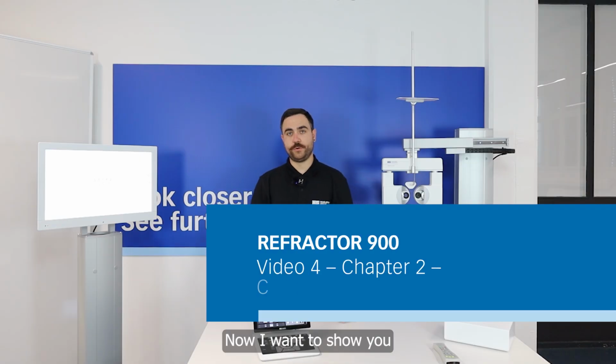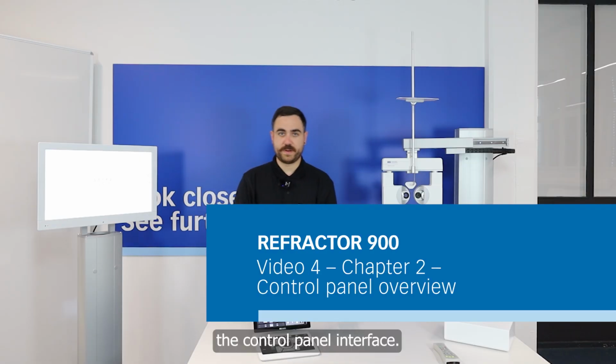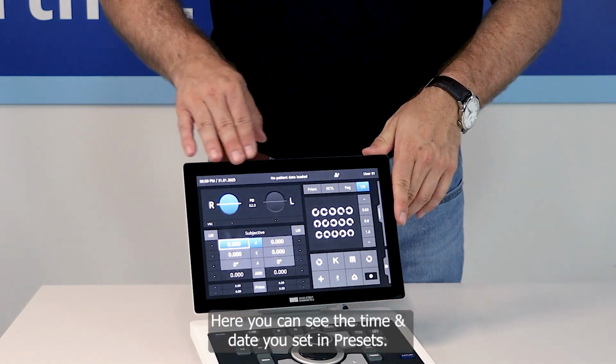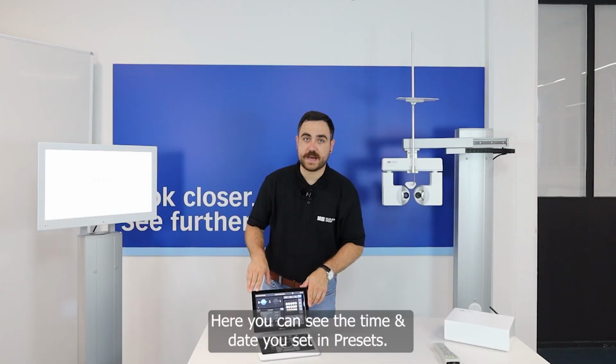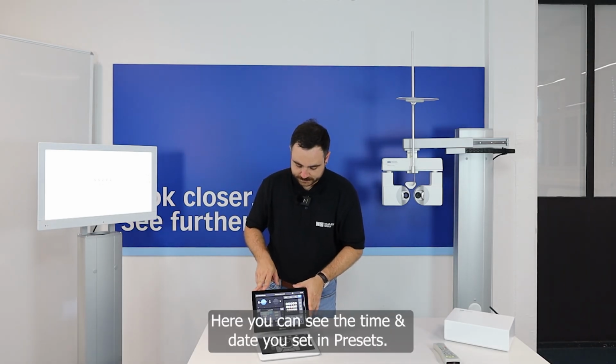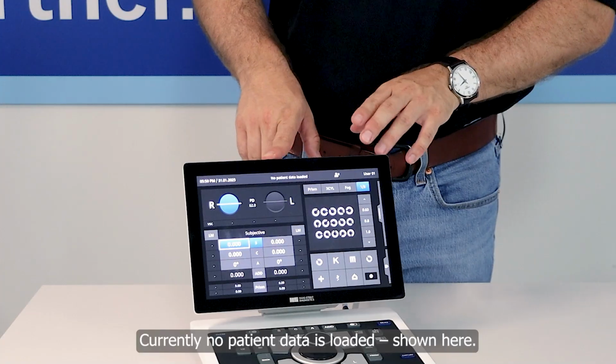Now I want to show you the control panel's interface. Here you can see the time and the date which you set in the presettings. Currently, no patient data are loaded.